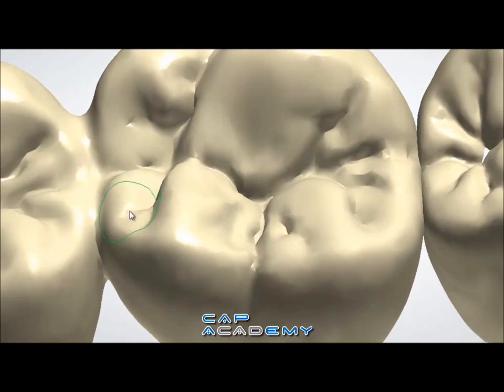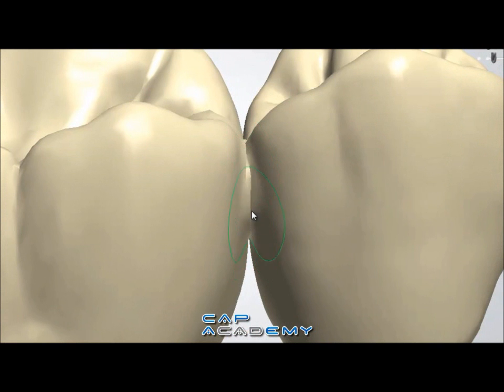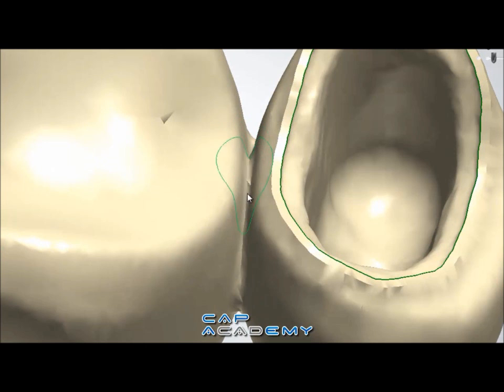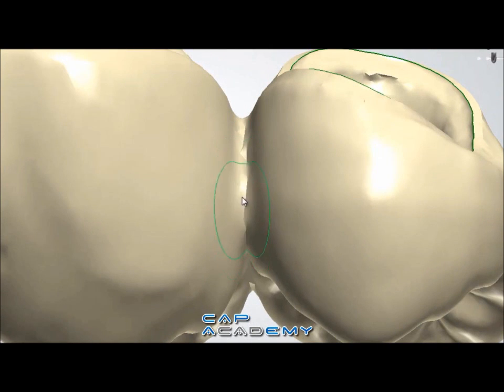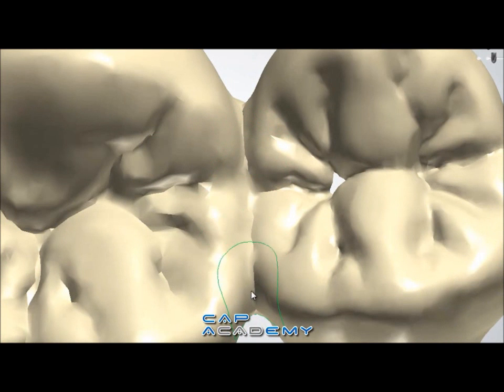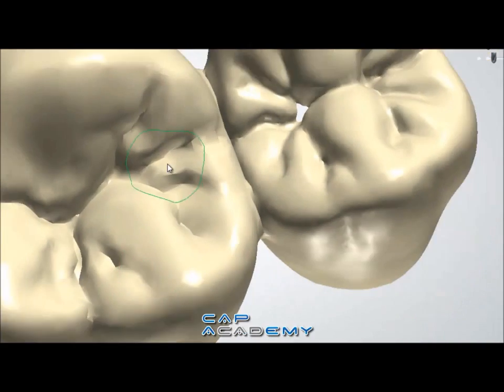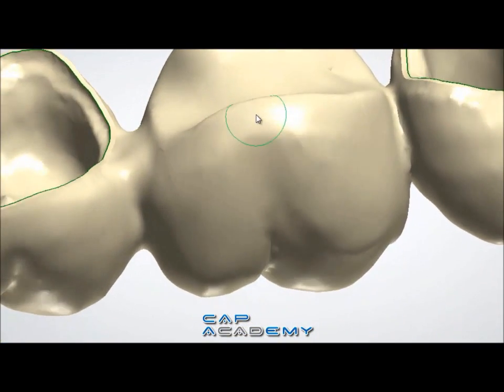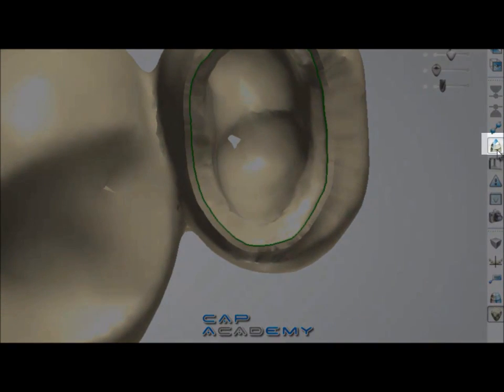This first connector I'm doing is a little overkill, I think. This next one, which has an even smaller intersection, I'm just going to really lightly go around the edge of the intersection and just slightly touch it up. Don't worry if it's too tight — the mill will know it won't be able to get into that interior surface and will not attempt to go in there. So here we have our final product: one bulky and then one thinner, standard type.